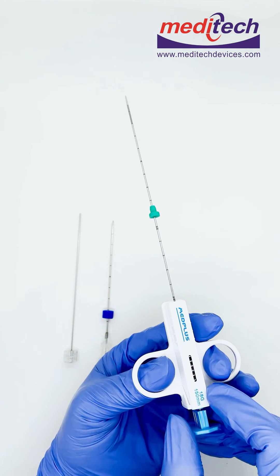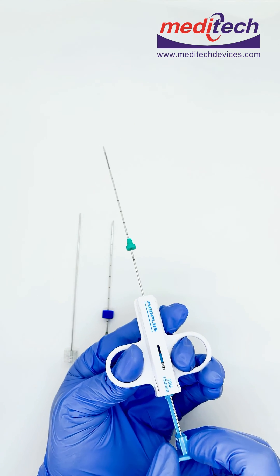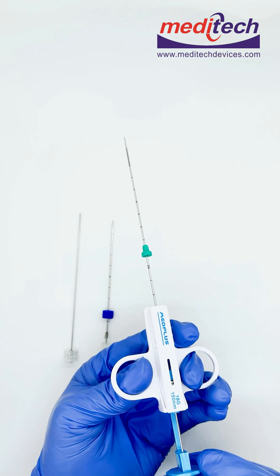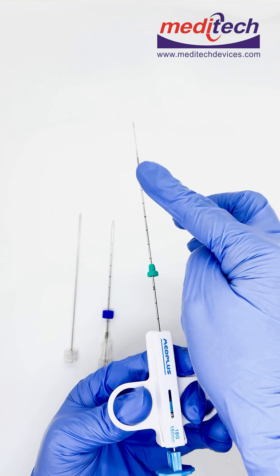Once you remove the needle from the body, for taking the sample, you have to load the instrument like this. Once you pull this, you will get the core from here.